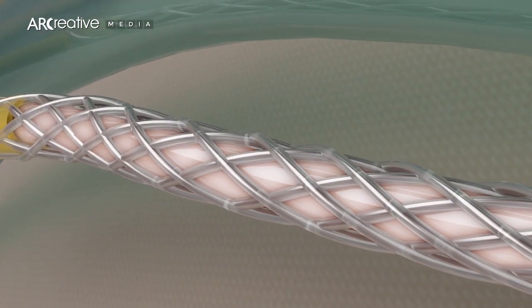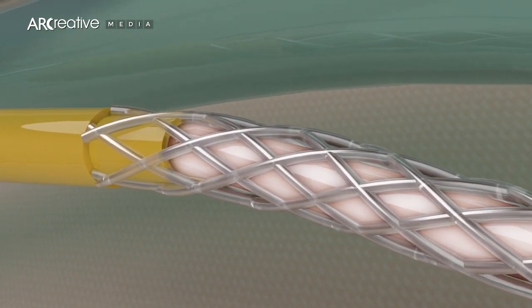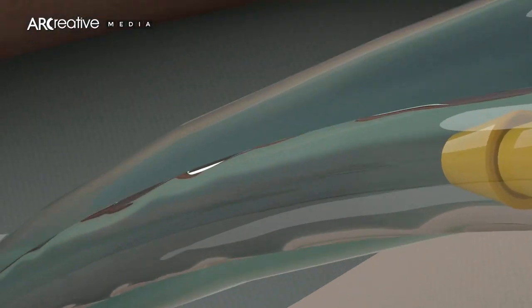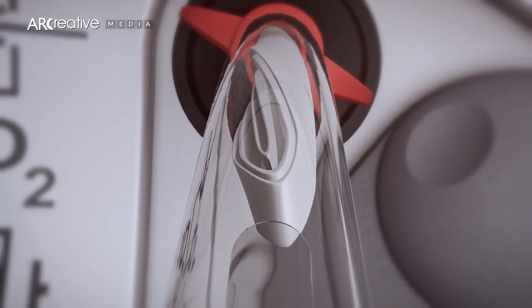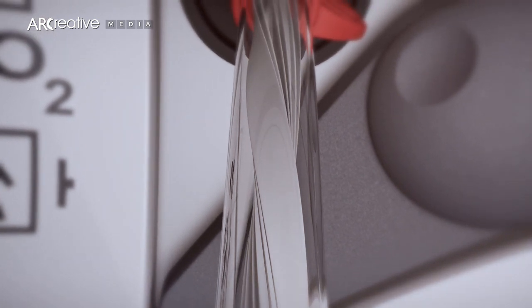Microstream filter line sampling lines are designed with a moisture reduction technology to extend usage time and a 0.2 micron hydrophobic built-in filter designed to reduce monitor contamination risk.